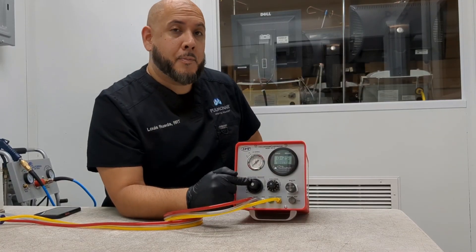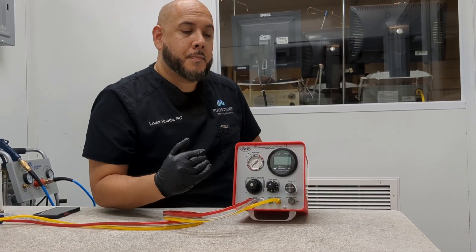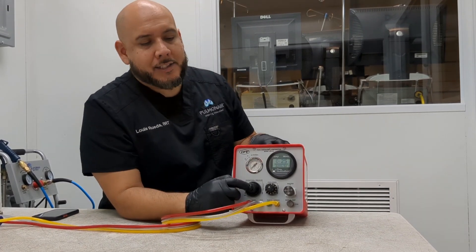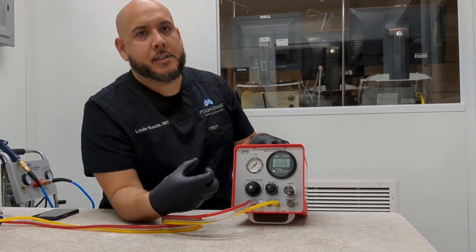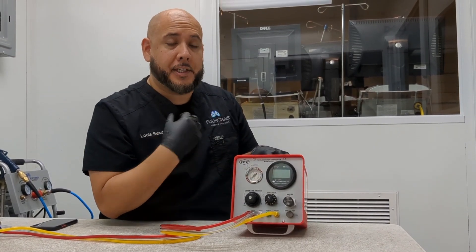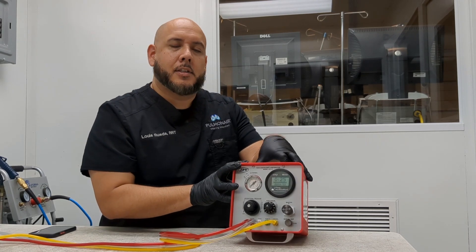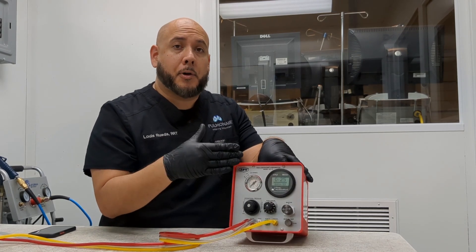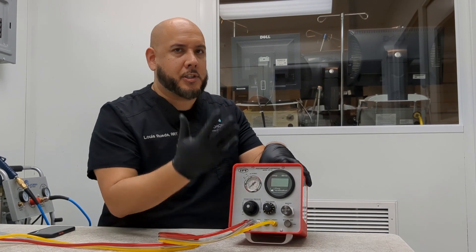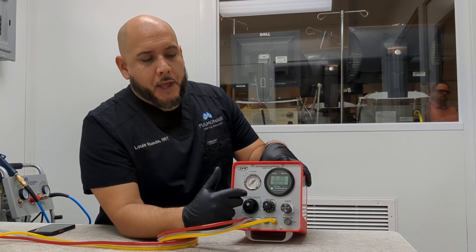Keep in mind with our operating pressure: the lower it is, the lower output you get. Because it's pneumatic and this is not designed to be a direct control over the pressure output towards the patient, it has to have enough pressurization inside in order to operate. You will notice that if you get too low on your operating pressure, the device will just cut off, even though it's reading a PSI.